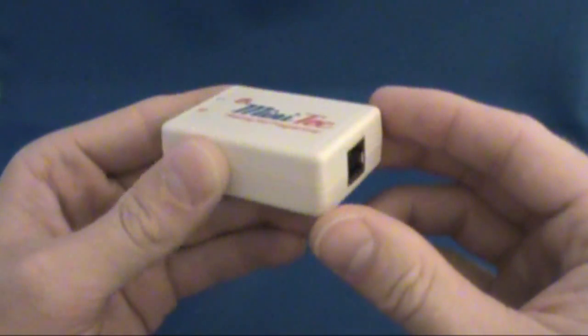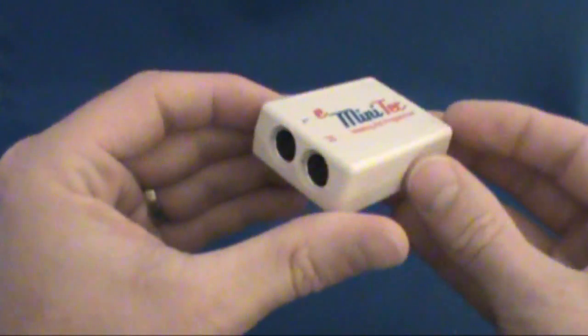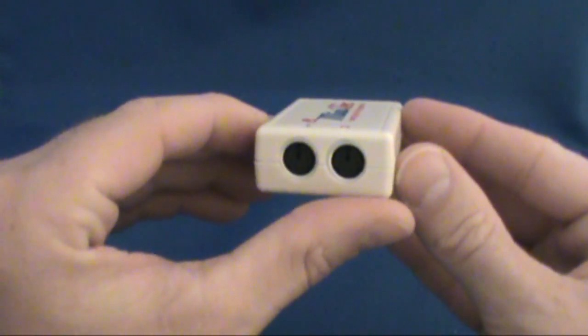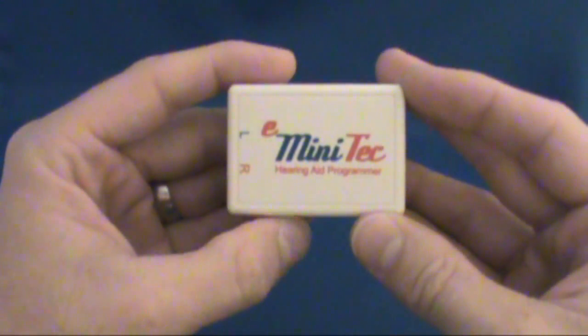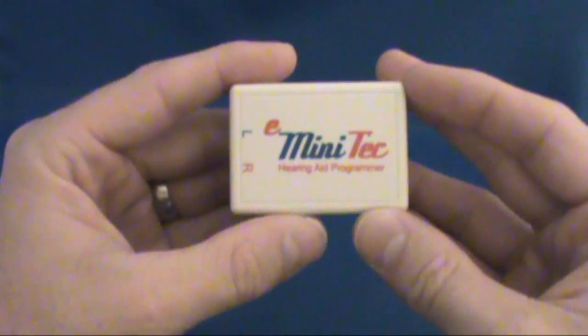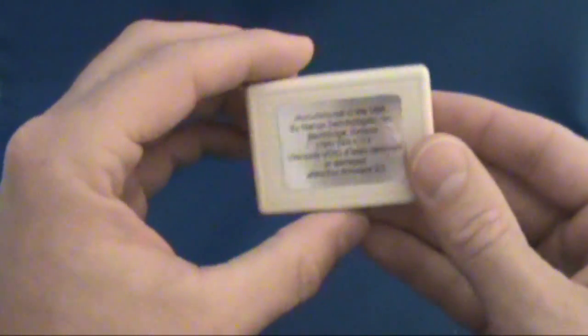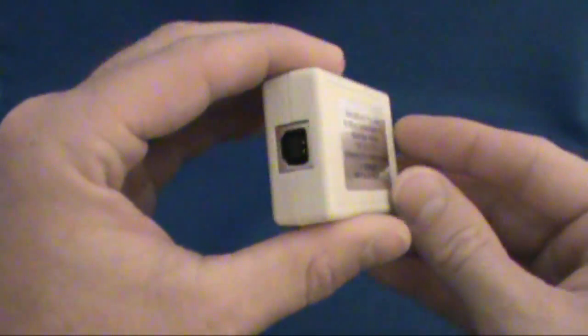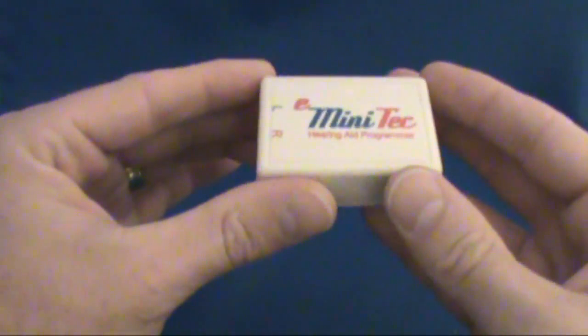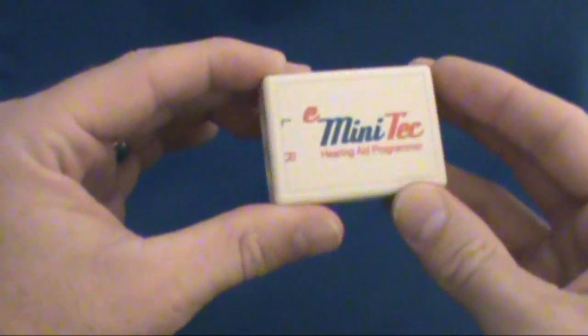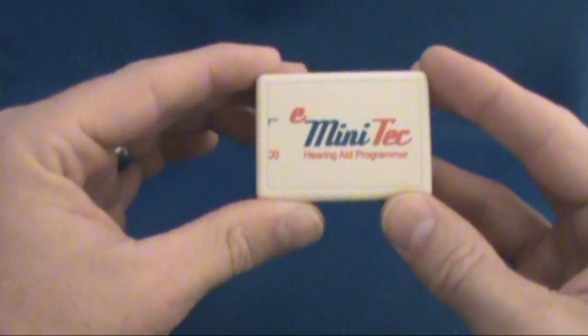First let's go over how to connect the e-minitech to the computer. The e-minitech is the proprietary hearing aid programming device that Hearsource has developed. This powerful compact hearing aid programming interface is the necessary tool needed for you to program your own hearing aids.